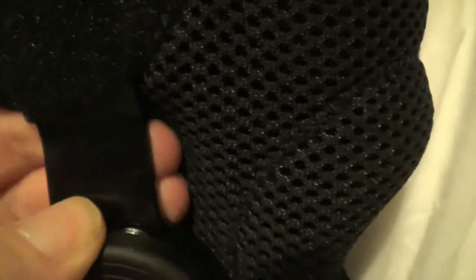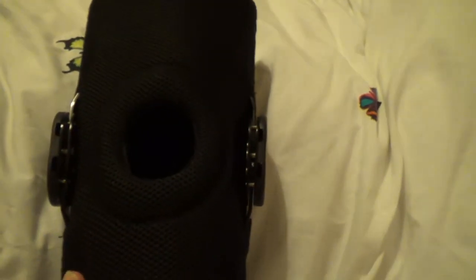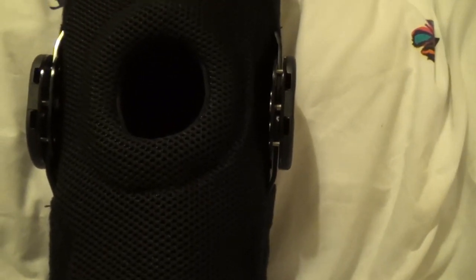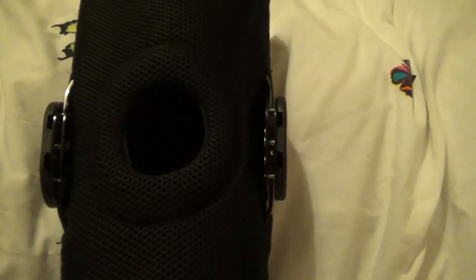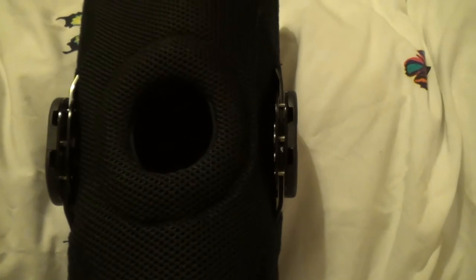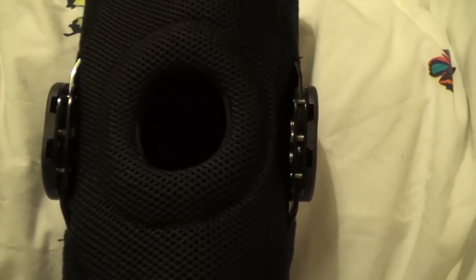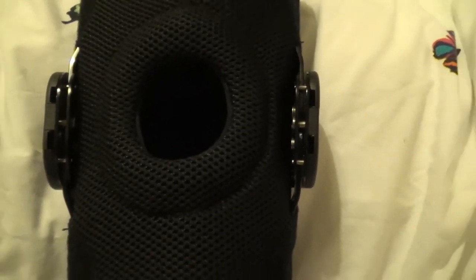These are really good — they have really good metal construction. You can see the powdered steel insert on either side, and then this hard but flexible area around the patella. I like these a lot. The problem with them is that you can't wear them under jeans because they're too bulky, and you can't wear them over jeans because they're too tight. These are the kinds of things I sleep in, or I'll wear around the house with just compression tights underneath — not something I'd be wearing outdoors normally. The only thing I've ever found that I can wear over them is big baggy linen trousers in the summer, and I get the piss taken out of me by colleagues for wearing these ridiculously baggy linen trousers. Guys — this is the reason why. It's to fit these things underneath.